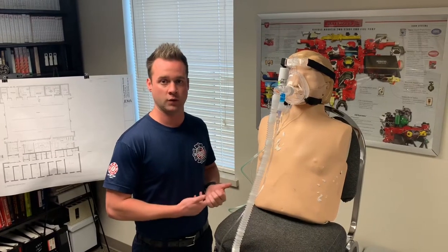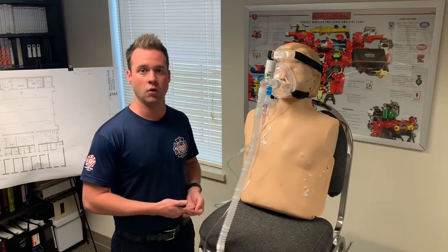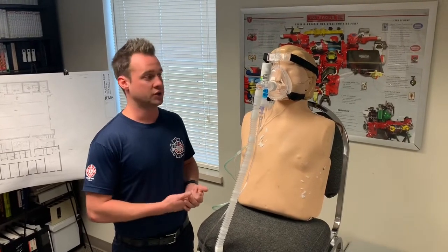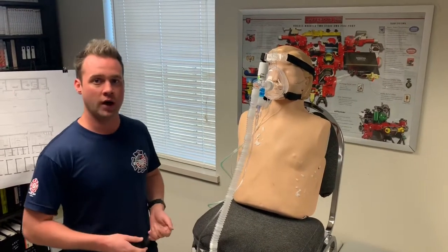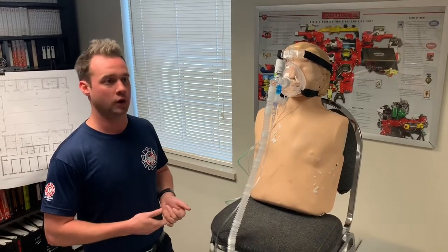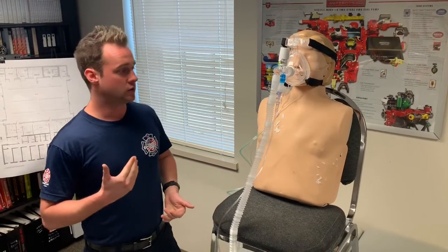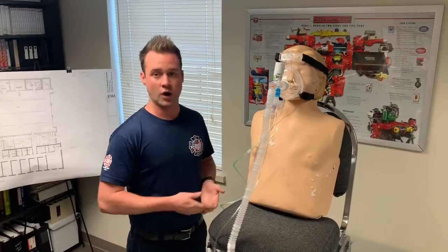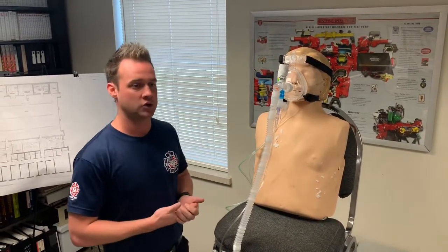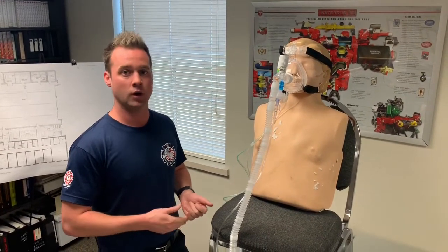They're going to have decreased lung sounds or significant wheezing. A lot of them will have a history of COPD or CHF. Contraindications are going to be patients that cannot follow commands or altered mental status, as well as facial deformities or significant oral secretions. And to keep it simple for setting the positive end expiratory pressure, if they have dry lungs or a COPD exacerbation, we're going to set it to 5. If they have wet lungs or a CHF exacerbation, we're going to set the PEEP to 10.